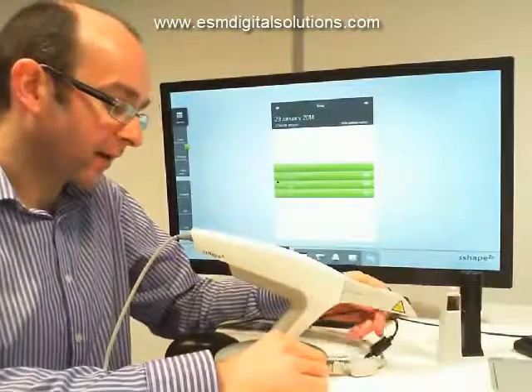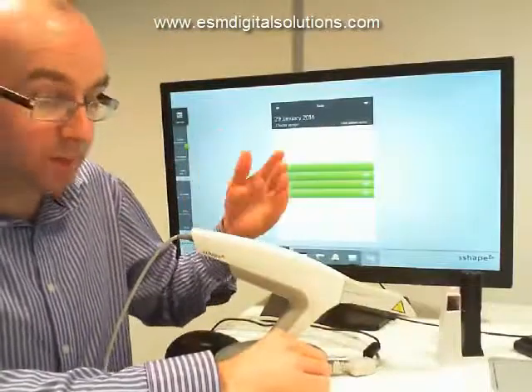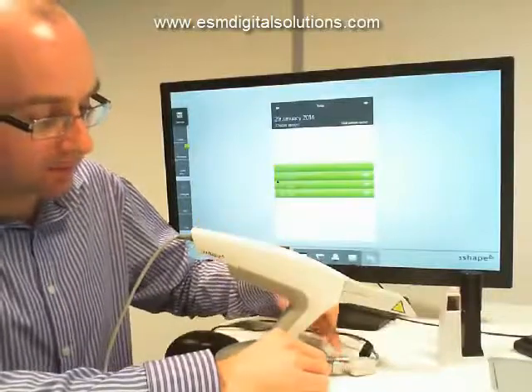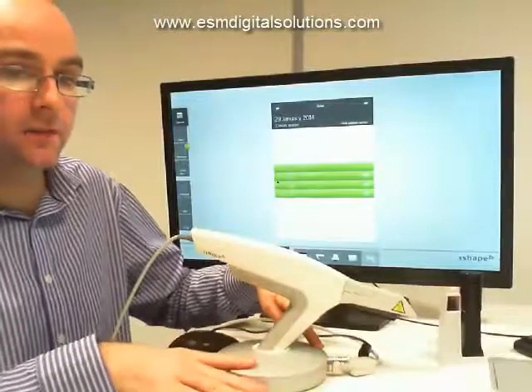Finally, the black cable is the power supply cable — 220 volts or 110 volts depending where in the world you are. A typical AC supply comes into the transformer and is automatically adjusted to an appropriate voltage and brought into the pod.